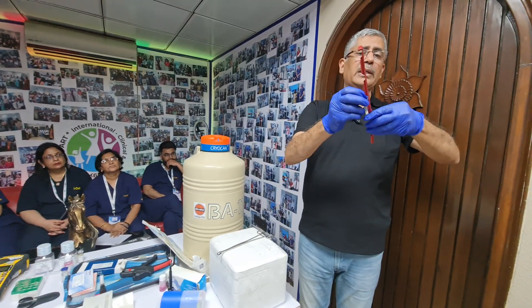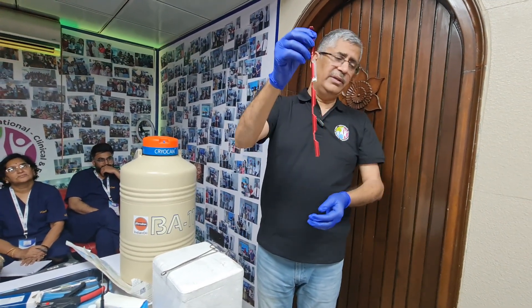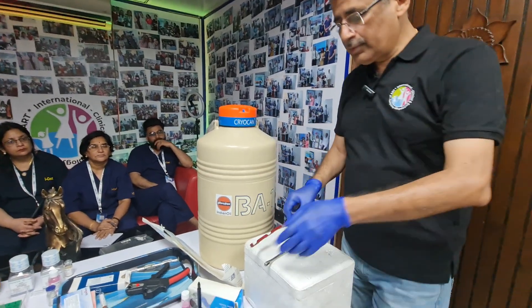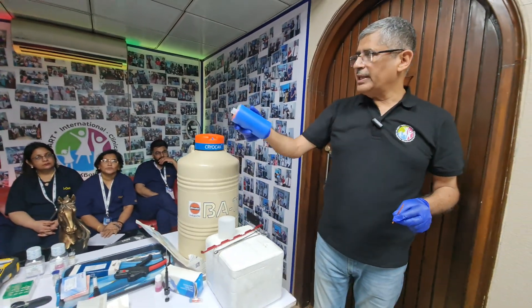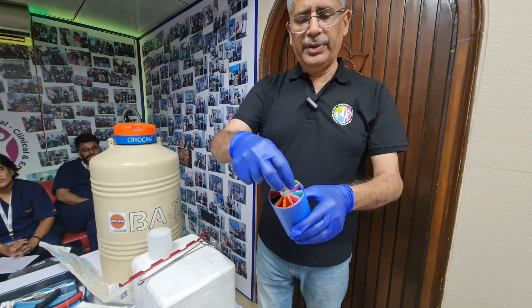After sealing, we can put around three of these inside the LN2 — that's the way we freeze the semen sample. For these straws or vials, we are using viso tubes and goblets. They go in like this and we lock them.